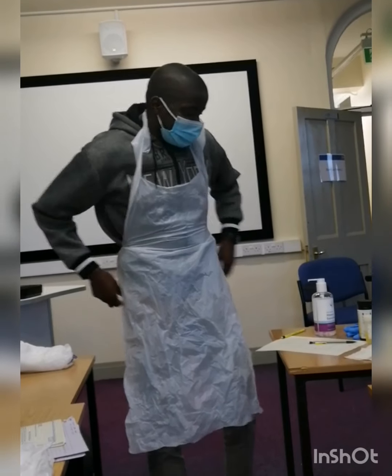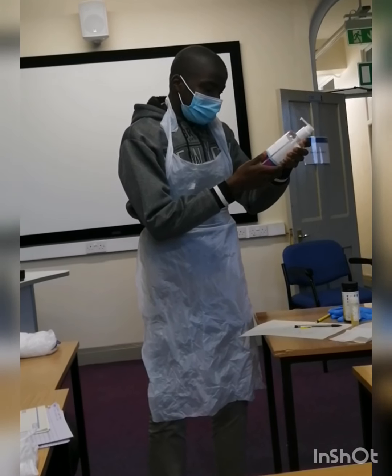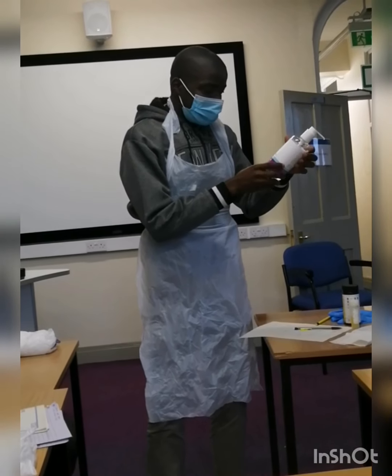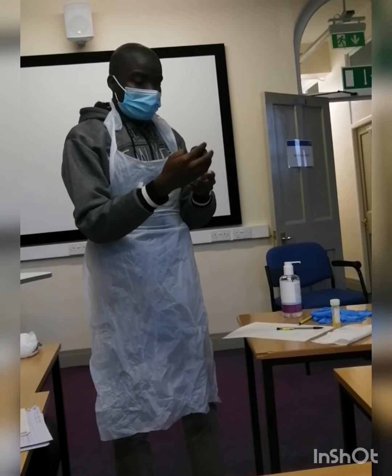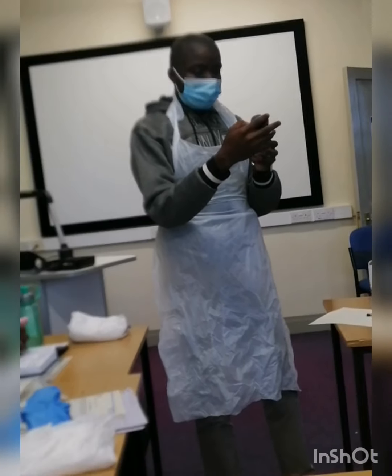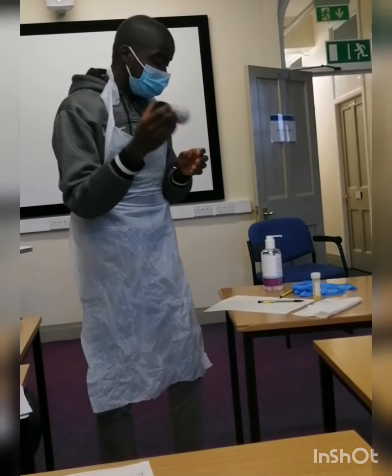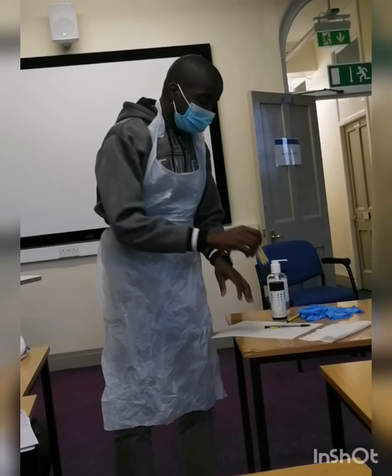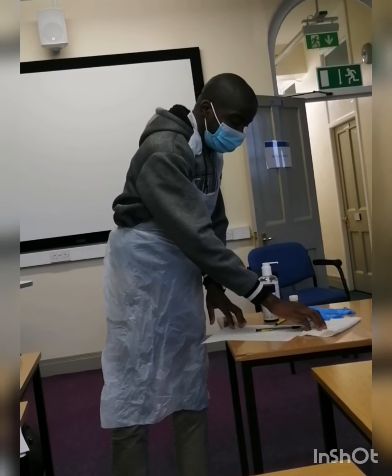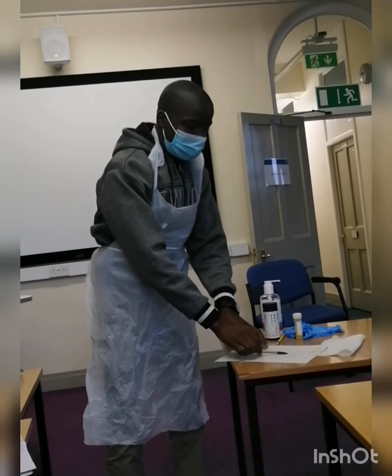I'm ready for you. Okay, it's fine. I will require — expiry date 23, I'm happy to use. I have a sample bottle here with my patient's name on it, I have my tissue paper, a pair of gloves, and my recording material.